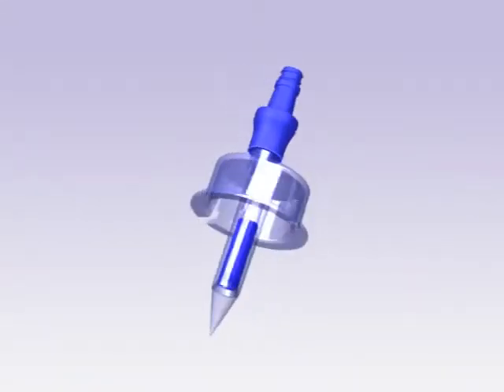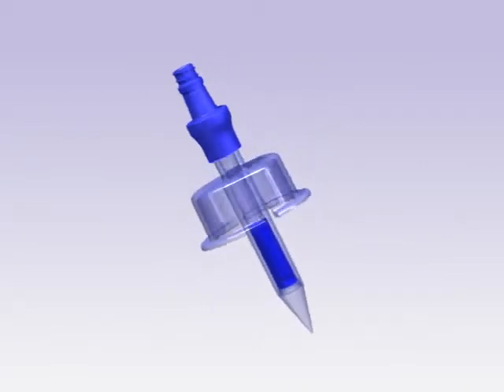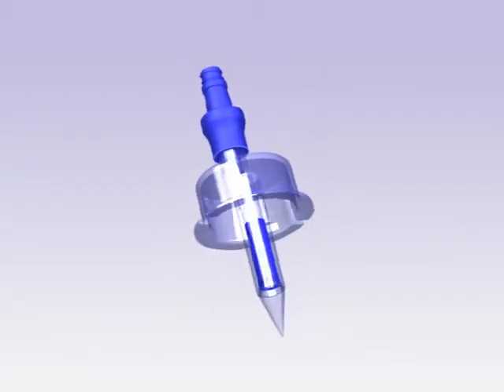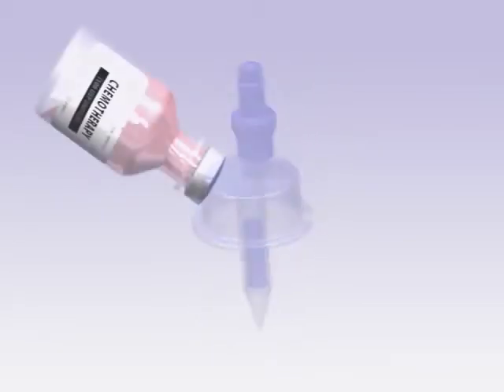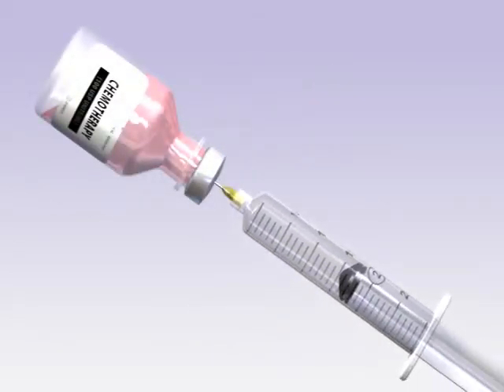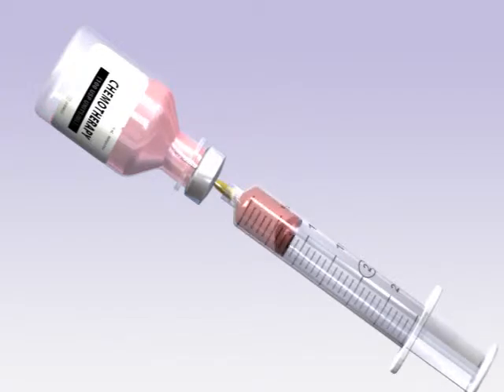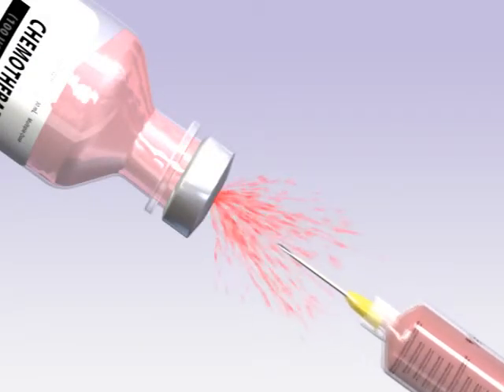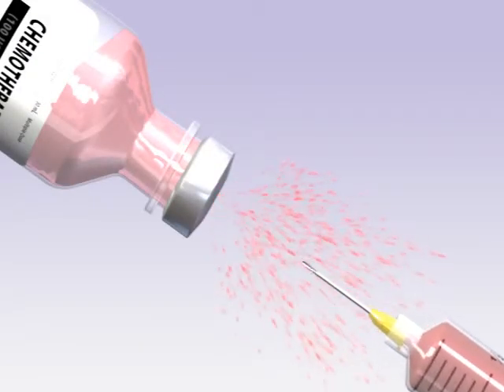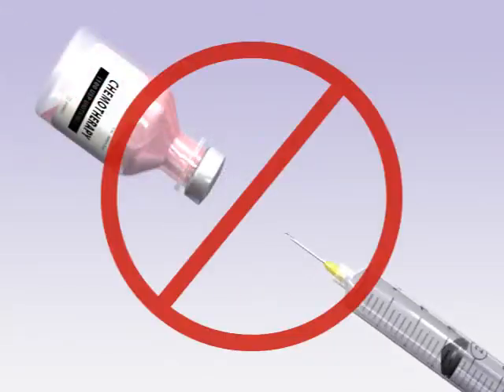The Genie vial access device is a closed system which protects the clinician from exposure to hazardous drugs during their preparation. Traditional methods of withdrawing fluid from the vial create differentials in pressure, leading to the release of vapors and aerosols which have harmful effects to clinicians and the environment. The Genie eliminates the use of needles.